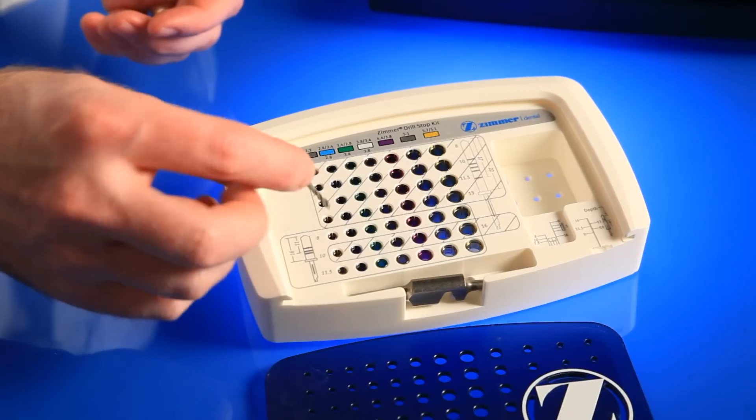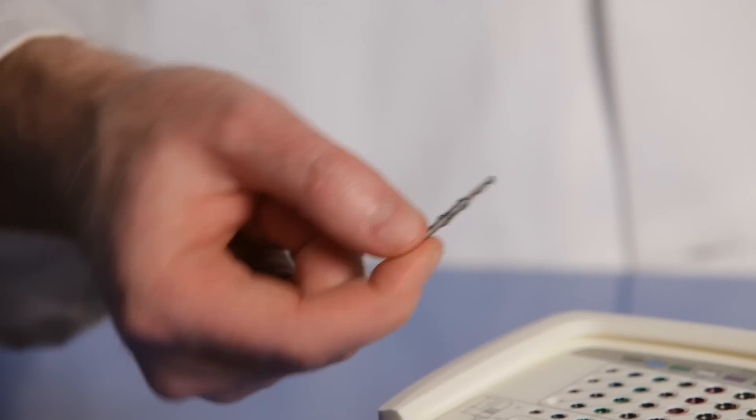To use the drill stops, we push each color-coded drill into the matching drill stop sleeve, which then clicks into place.